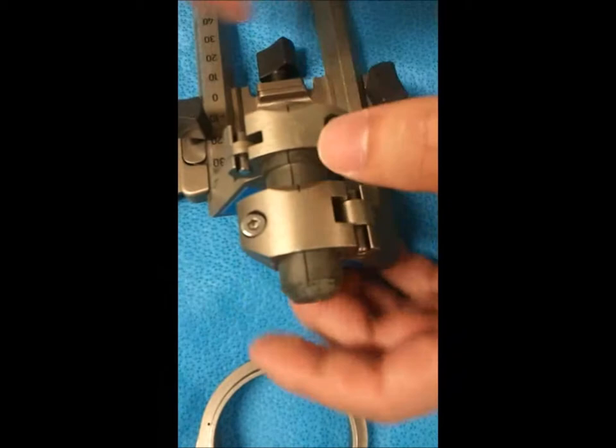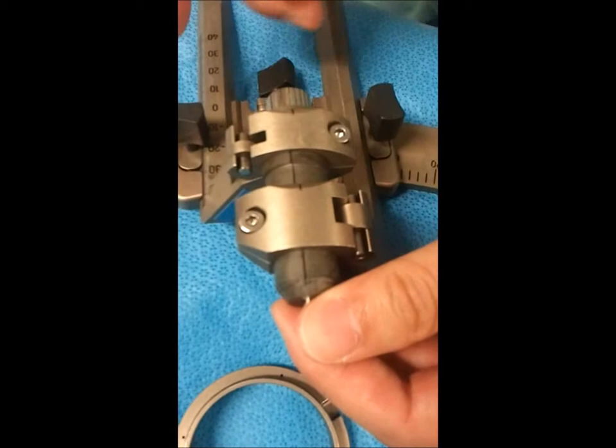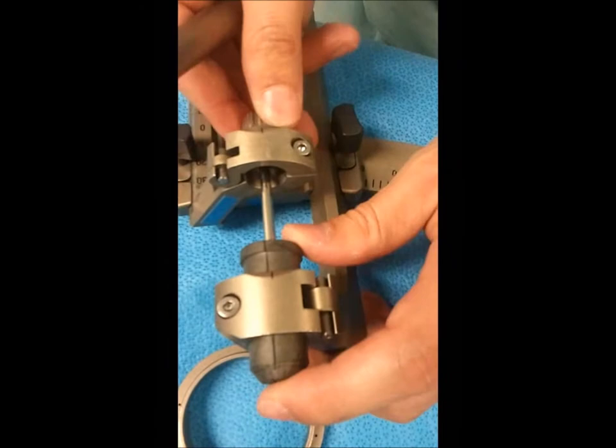Those two will line up as needed, and the reducing tubes will go inside. You have a large reducing tube that will fit in there and it will slide down to the other one if needed. This bottom piece can slide up and down appropriately as needed — it helps to offer some stability.